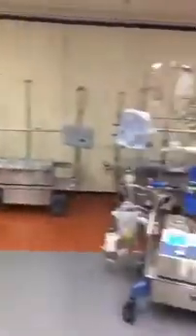Hi everybody, welcome to the perfusion lab. This is where we bring students in to get their hands dirty, so to speak. They start to learn how to put the equipment together, how the heart-lung machine works — we have one set up right here. In second semester we move on to applying the heart-lung machine to different patient situations and different emergency situations. That's sort of how we progress through the lab work.